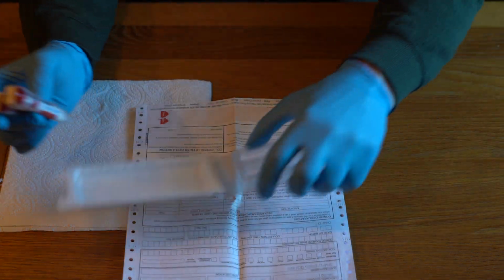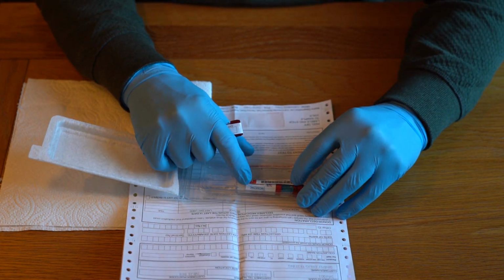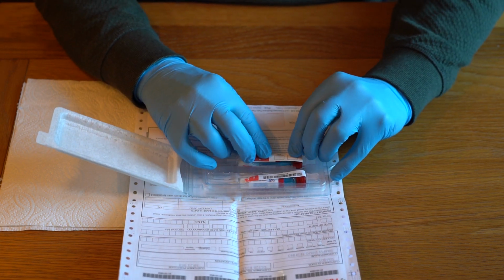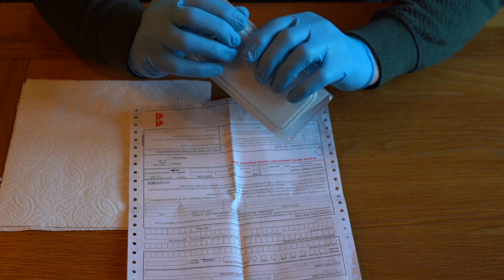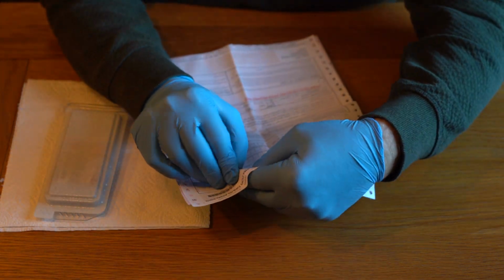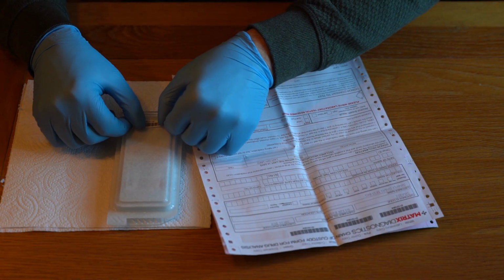We come back to the little plastic tray that I showed you earlier, and we're simply going to take these and push these into the little slots in the tray, being careful not to put rips or tears in the seals. So they go in there, and then we close the lid. And what I do is we have 4 barcodes at the top. I take one of those barcodes and I place that onto the back of the little tray.